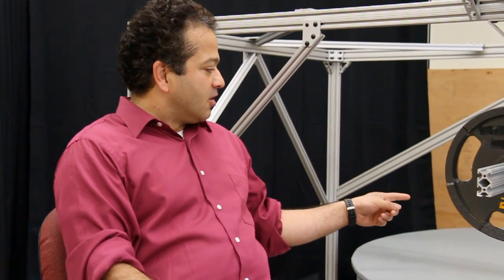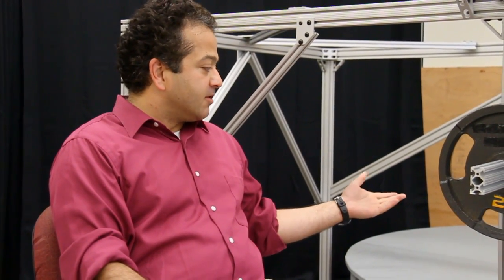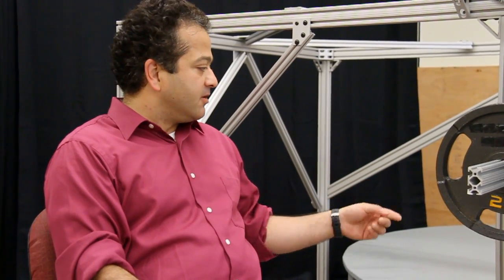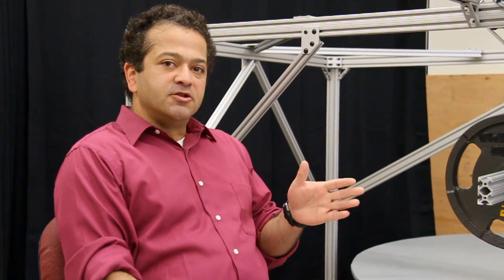This is the prototype of a powered ankle foot prosthesis. It has two controllable degrees of freedom and is capable of steering and changing direction.